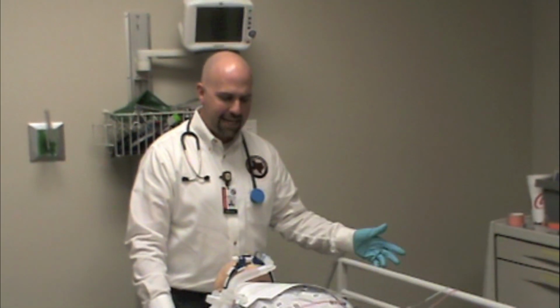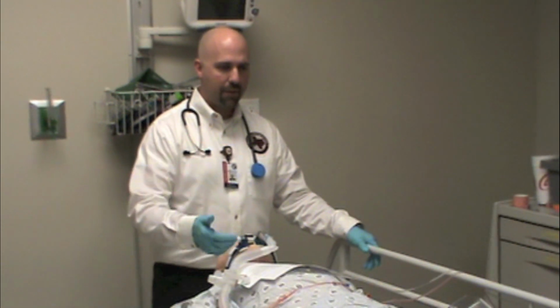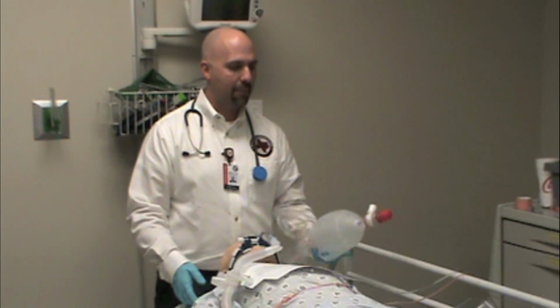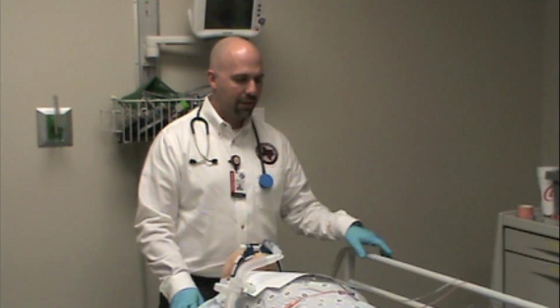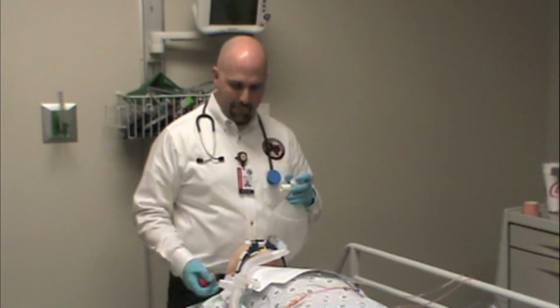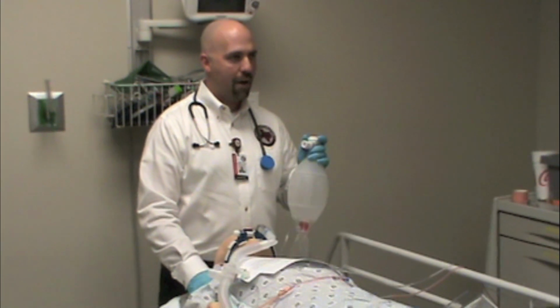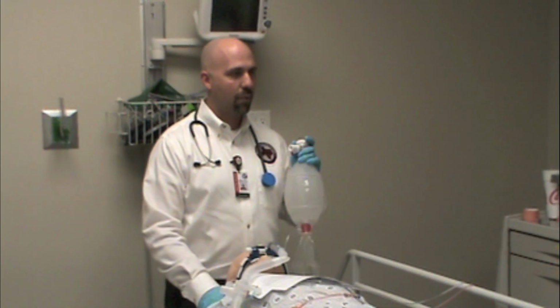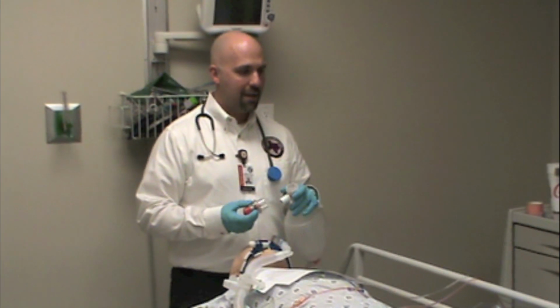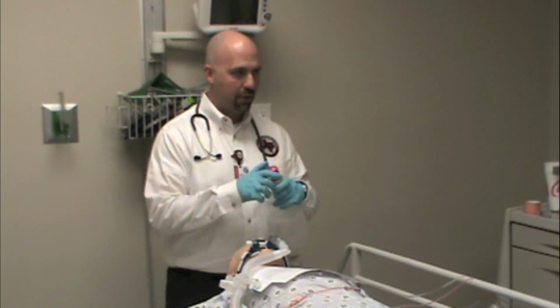The last thing is E for equipment failure. So if you think there's a problem with the ventilator, take the patient off the vent and see if they'll tolerate ventilation with a bag valve mask. Some patients with really, really sick lungs don't like BVM ventilation, especially if we don't have a PEEP valve attached to the BVM. So if you have a sick patient that's required a lot of oxygenation, if they've required a lot of FiO2 or a lot of pressure, and they've required a lot of PEEP, you're not doing them any favors by removing all PEEP when you go to use a BVM.